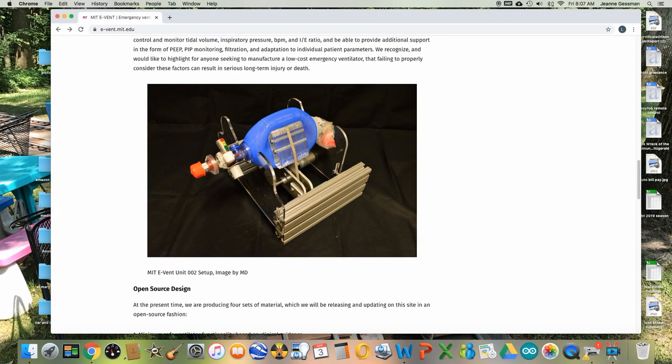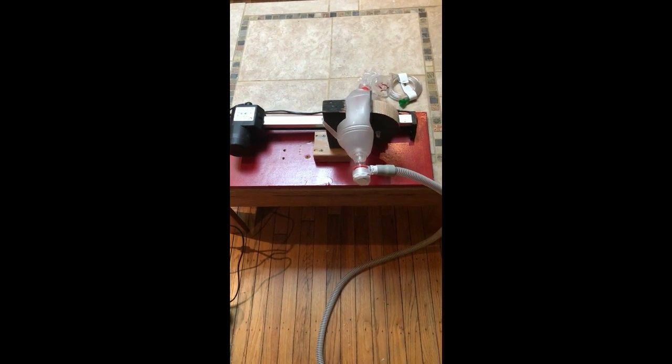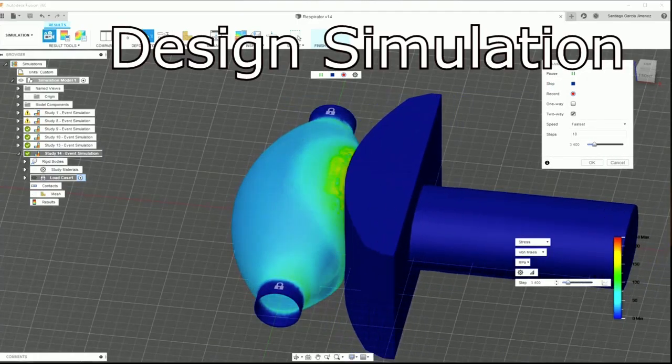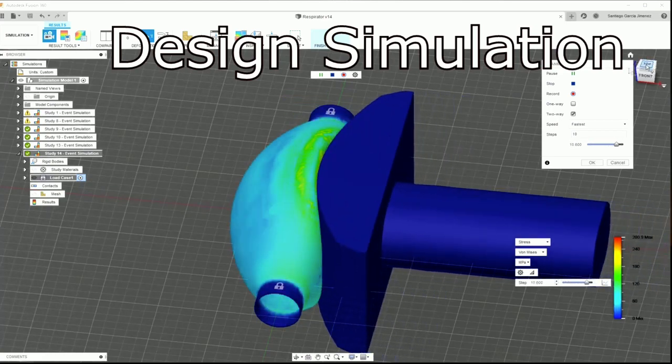Here is a picture of the MIT design showing its mechanical hands. To build my first prototype, I took apart a furniture leg lifter which was using a linear actuator and designed this simple ventilator system shown in the video here. But the problem with this was that by compressing from one side I wasn't evenly compressing the Ambu bag.